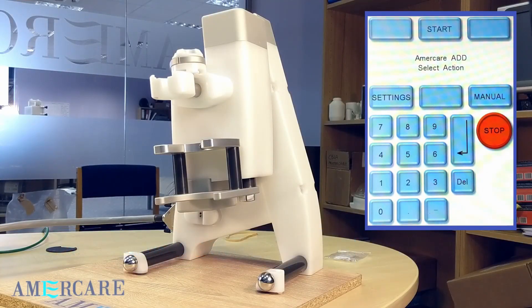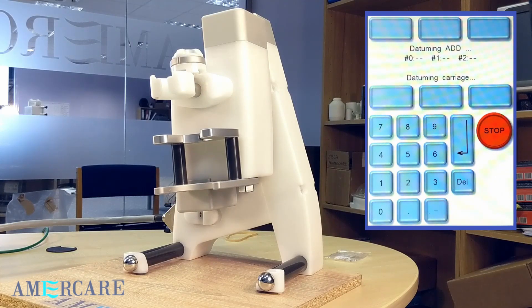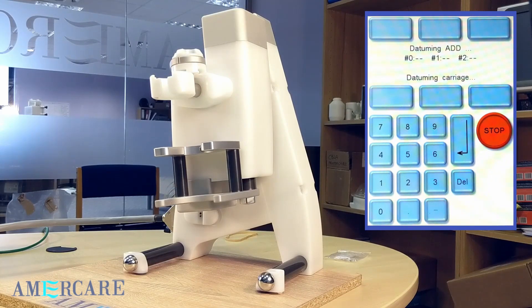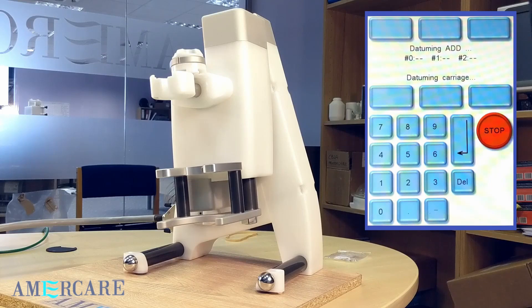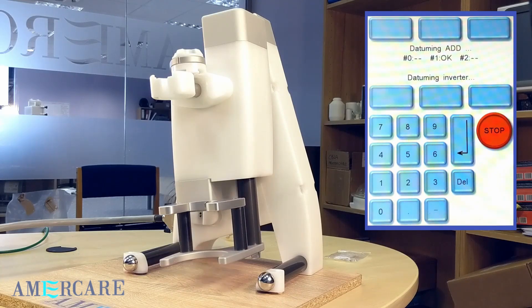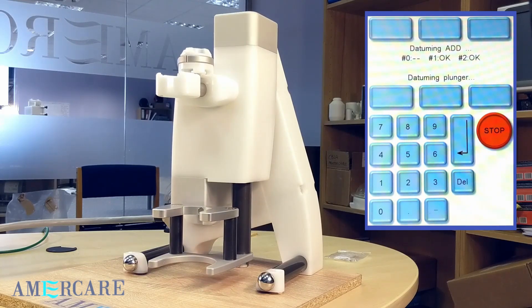The syringe, the carriage, the inversion and the plunger.